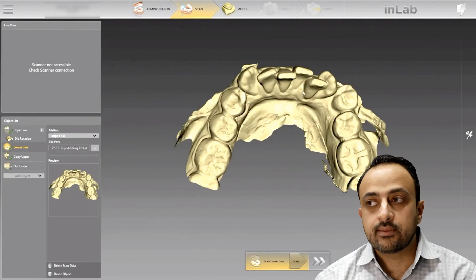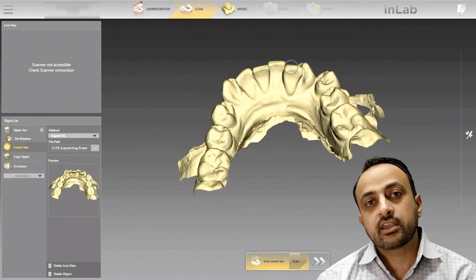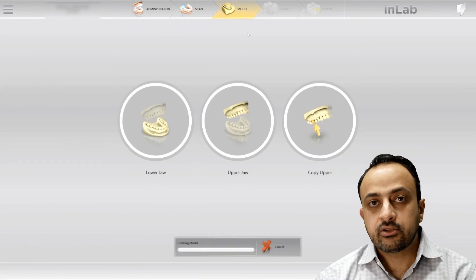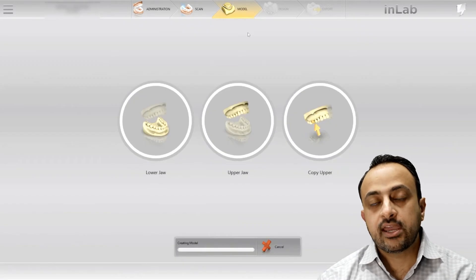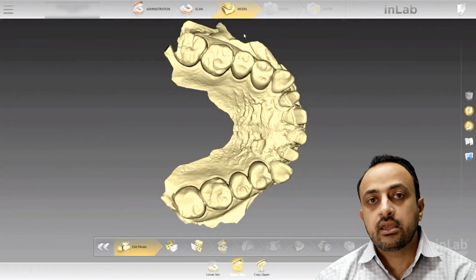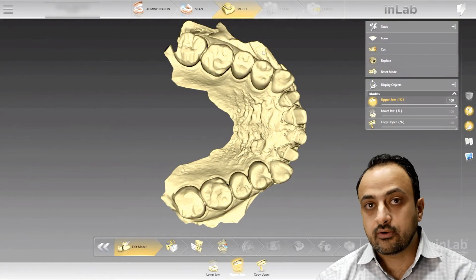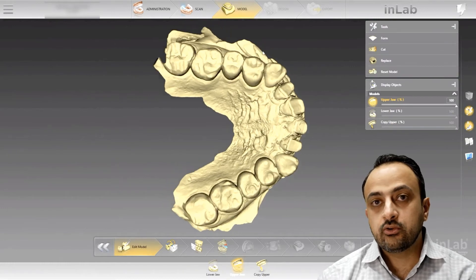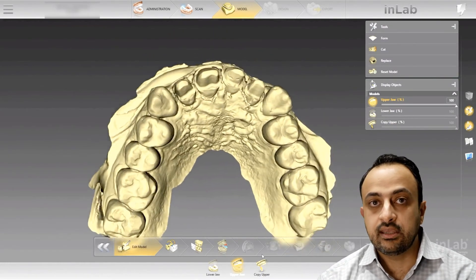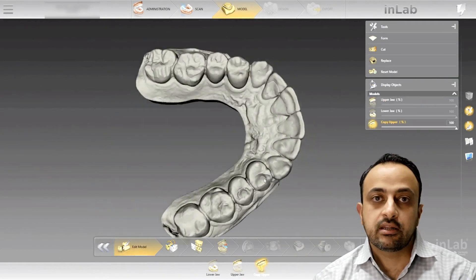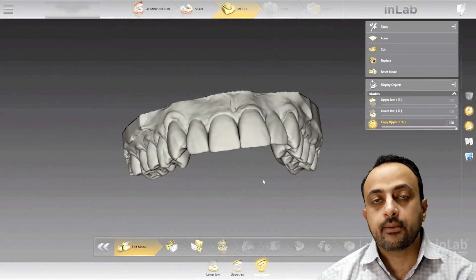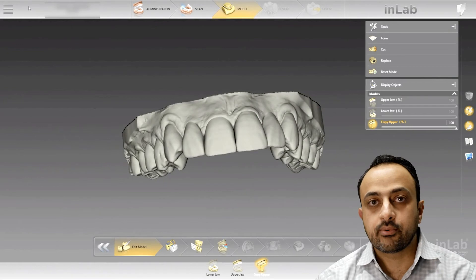It'll go into the InLab software. Now I can proceed to the model phase, let the models calculate, and then I have to get this back out of the InLab software so I can bring it into my CEREC software. The way we do that is by using a file type called a DXD. So once I have my models created in InLab, I'm just verifying that I have my upper bio copy and my preparations.